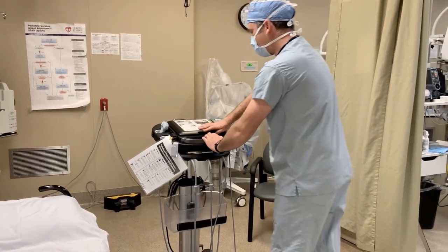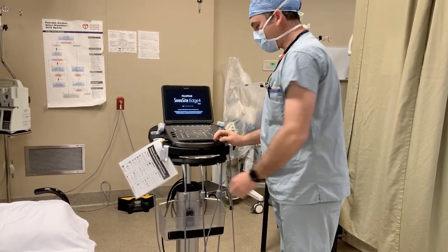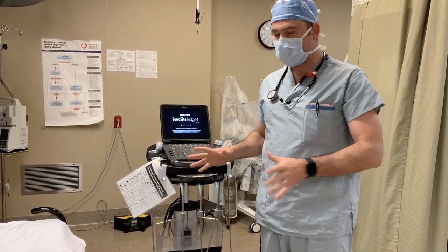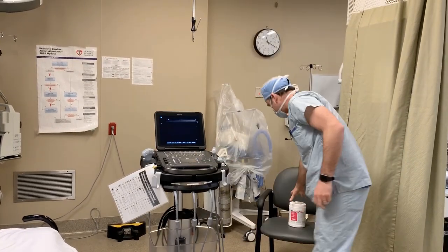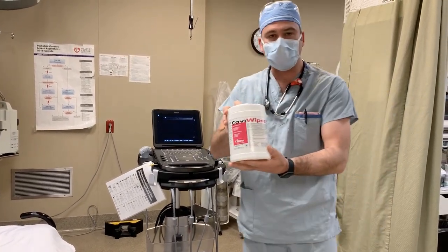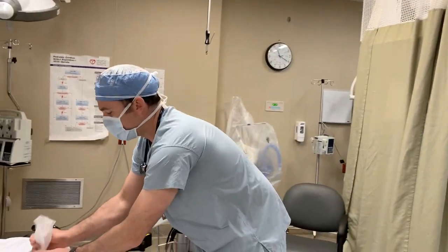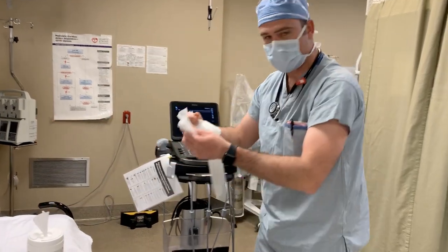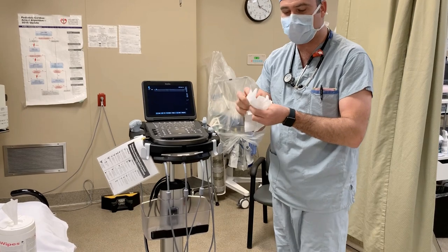What I'll do is I'll turn the machine on. And remember, this is something that can be done when you're not in PPE — this is not inside the room with the patient, this is in advance to entering the room. You're going to take your cavi wipes, which are for cleaning the machine, and put six, maybe even eight to ten wipes someplace on your machine where you can access them afterwards.